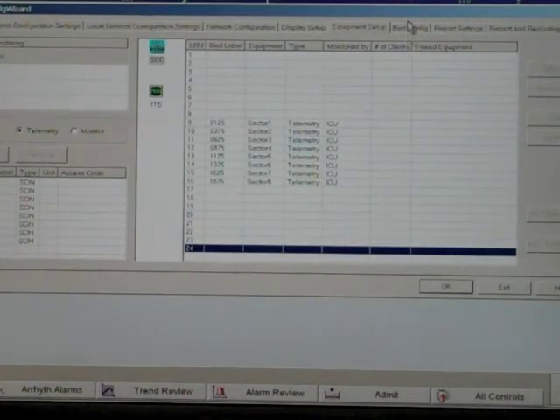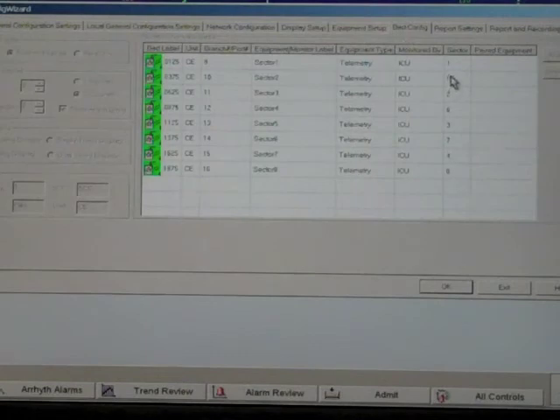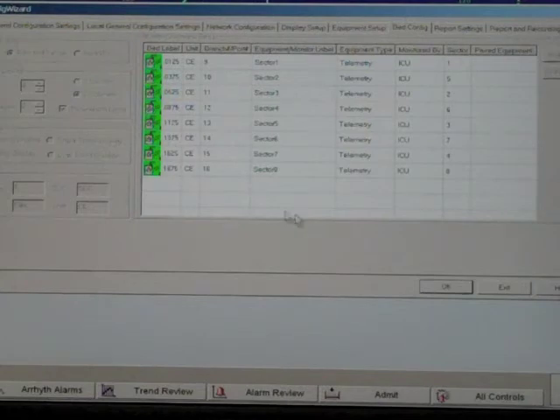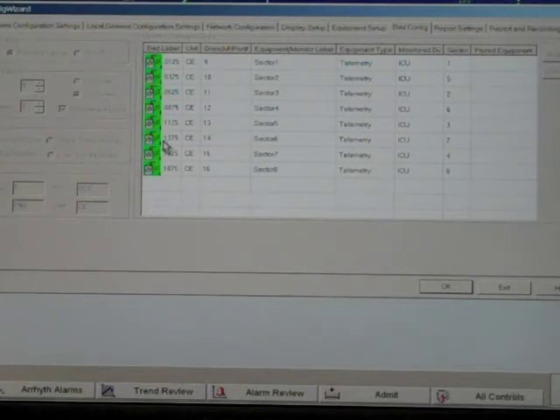Next, click on the bed configuration tab. In this screen, you should see a list where the sector assignments for each LBN are. Also on the screen, you should see the number of sector settings and the waves per sector. Verify that they are all correct for your system's configuration.